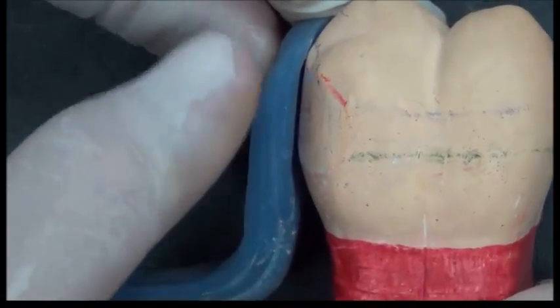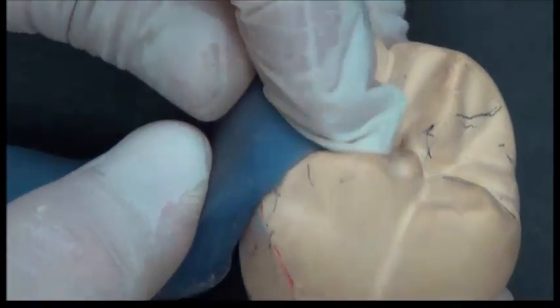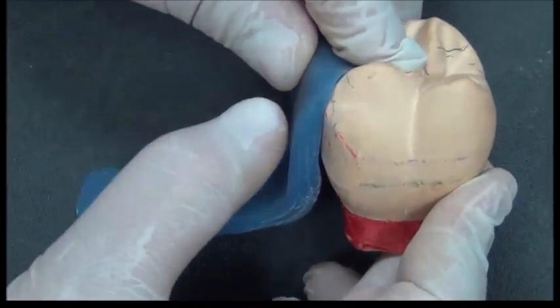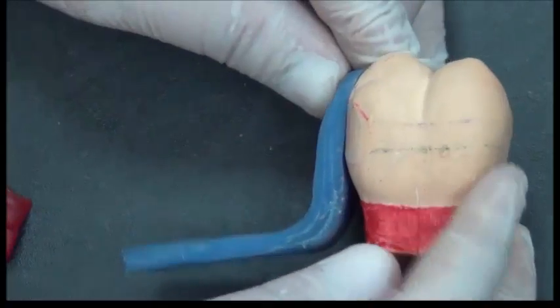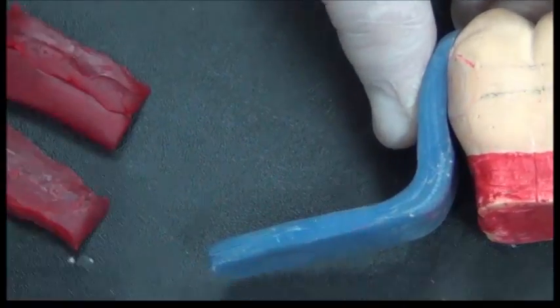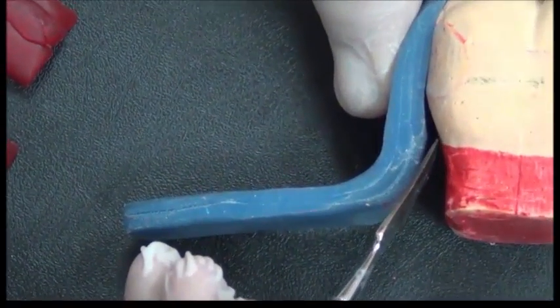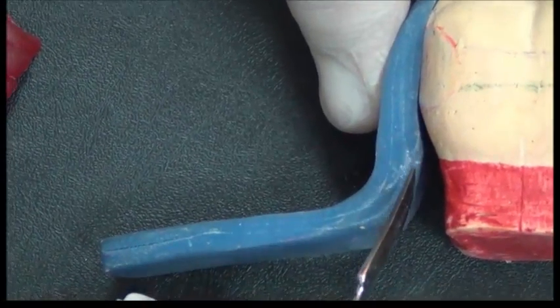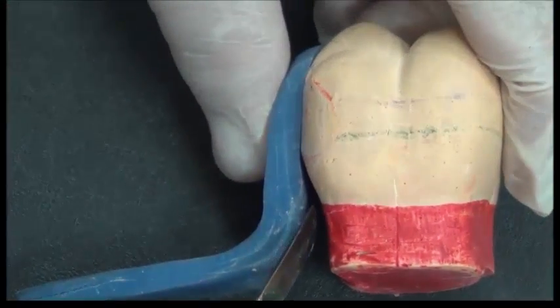For example, if the metal is touching the tooth on the rest side, here, in the rest area, and the metal is touching the tooth on the bulge area proximally, because the free side or the bridge area where teeth are lost is on this side, there should be an area where the metal components do not touch the tooth, because the gingiva is present here around the tooth, which is the soft tissue color around the tooth.